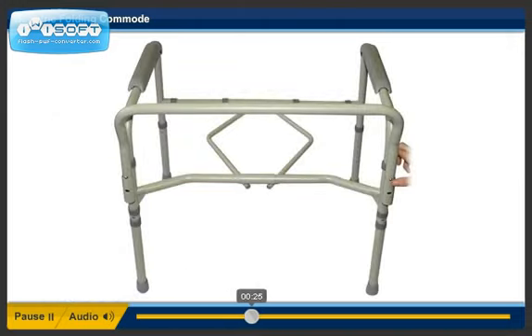Step 4. Insert the backrest into the frame of the chair. The bend in the backrest faces to the rear.